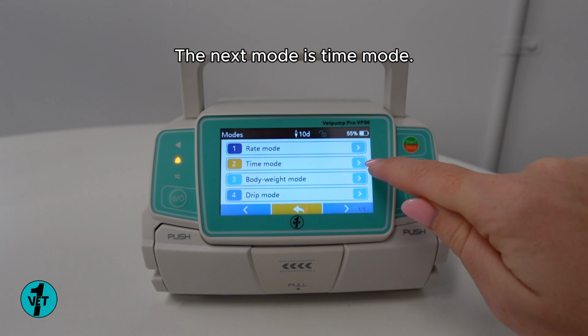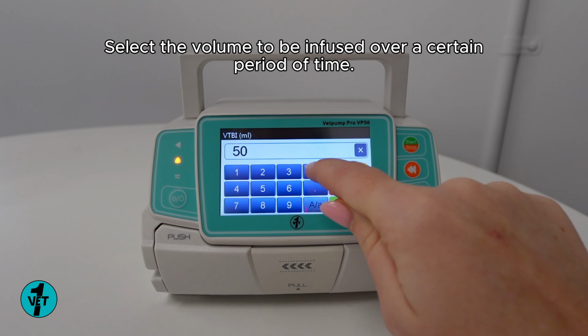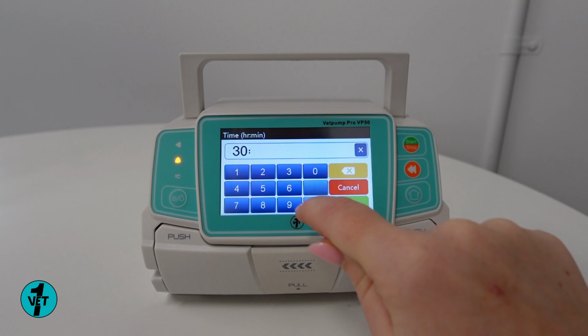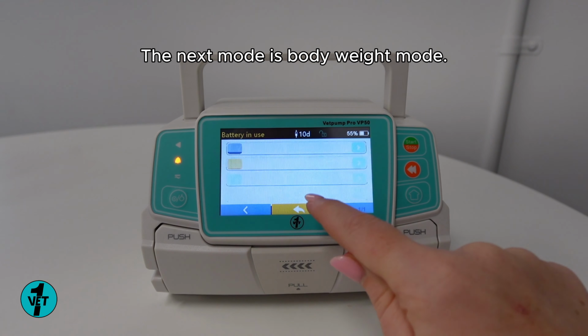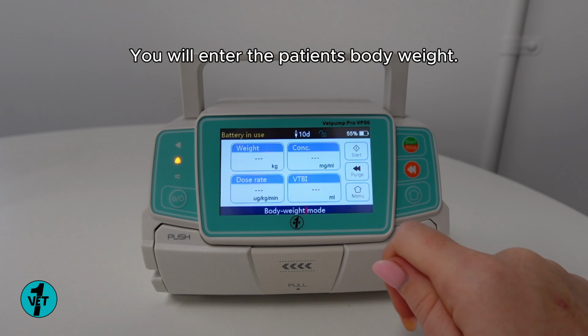The next mode is time mode. Select the volume to be infused over a certain period of time, automatically calculating the rate. The next mode is body weight mode. You will enter the patient's body weight.